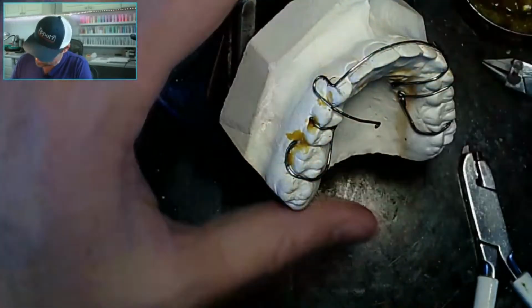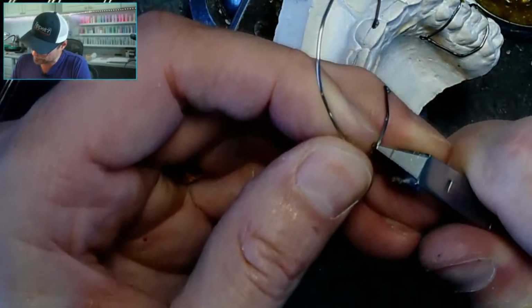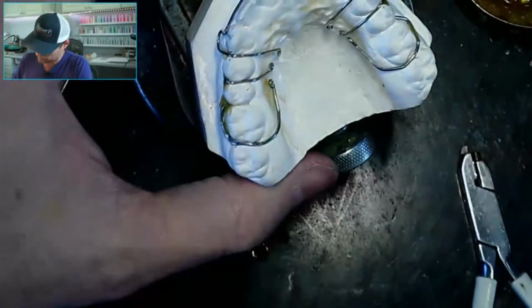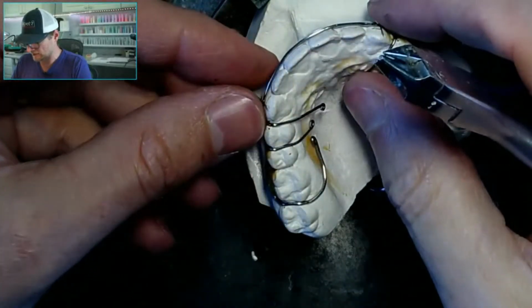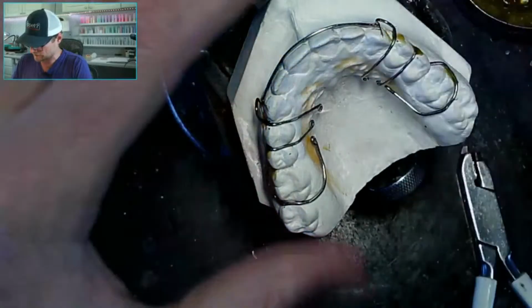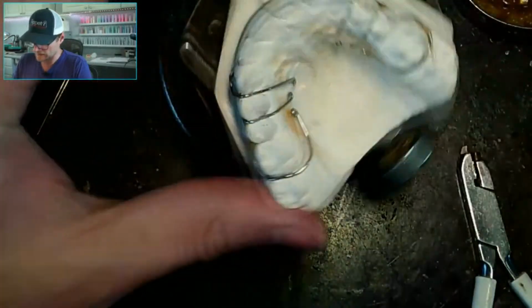This makes me think that this model is not the official model that's in those pictures, because these canines are not nearly as tall. And I think I made the mistake of using my tall loop formers instead of my normal height loop formers. And so now I'm having to go back and adjust these things. So definitely, and maybe I should have even used my bird beaks. I think I did a live stream not too long ago on whether I can bend a labial bow with just my bird beaks, which is a good technique to learn.